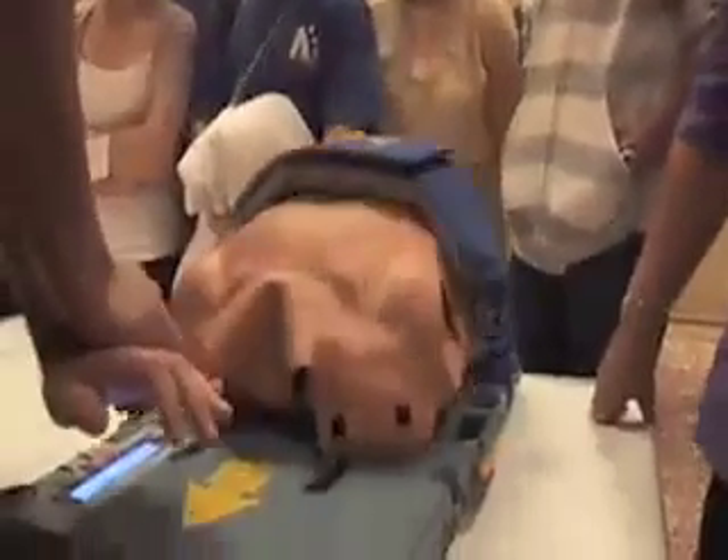That's a full 50-50 duty cycle. As far as it pushes down, it comes back up. When we do CPR and we get tired, we tend to rest our weight over and don't get the full recoil — it just happens when you're tired. So you come up and down.